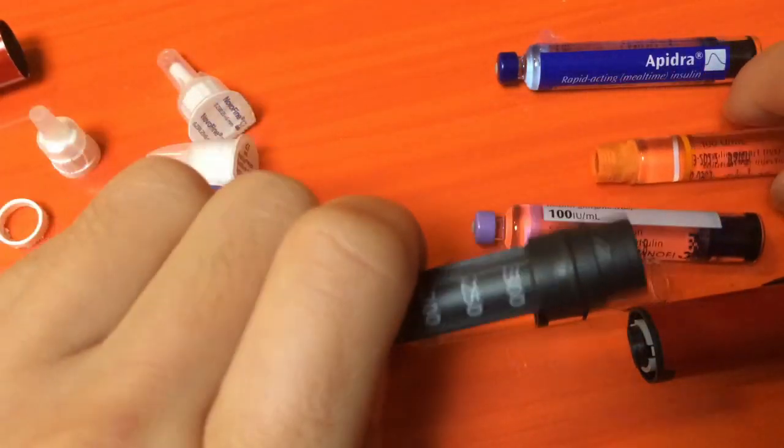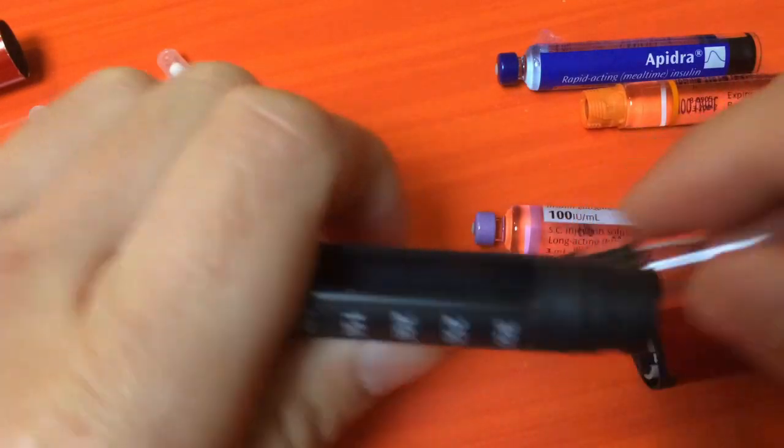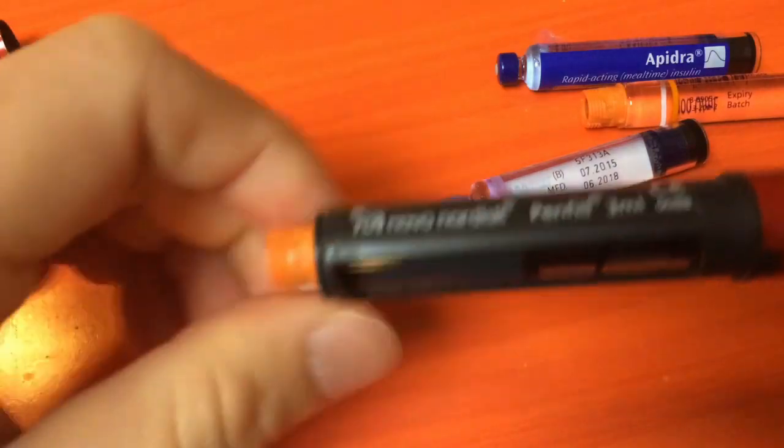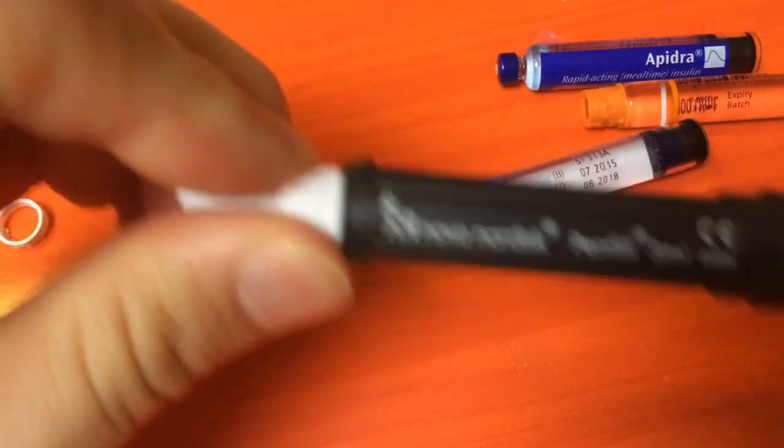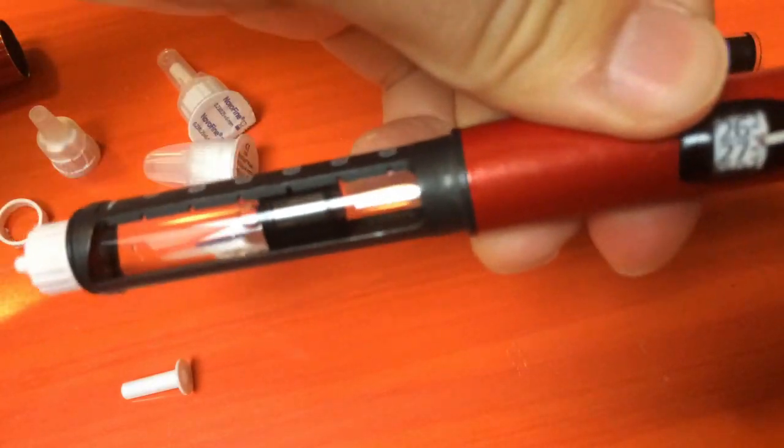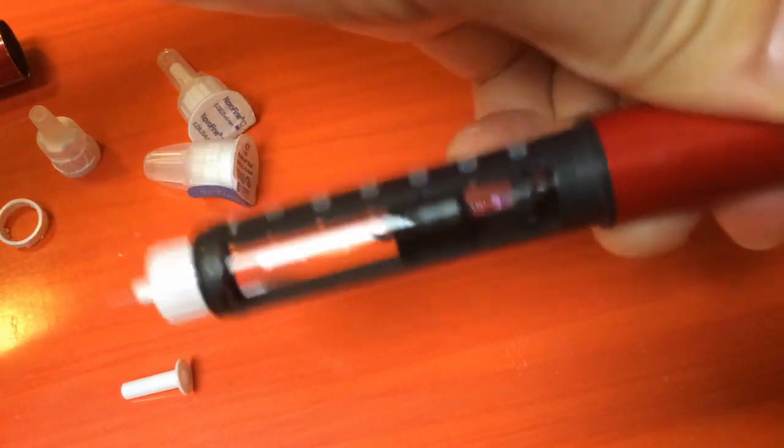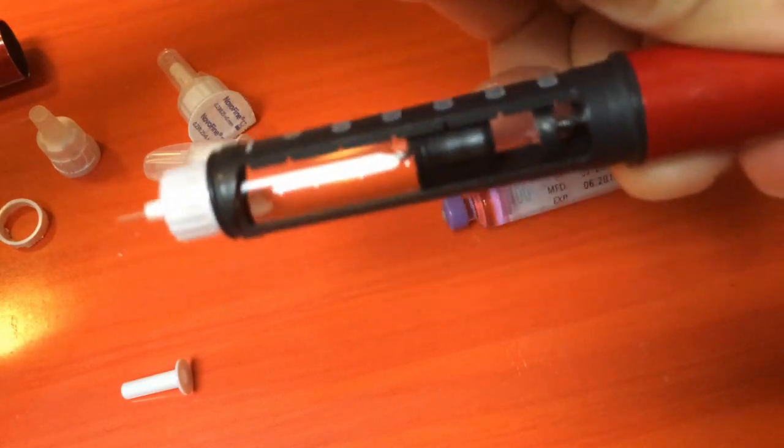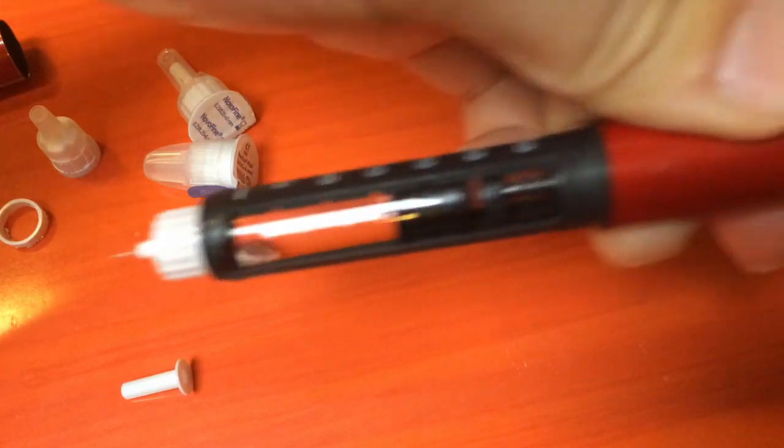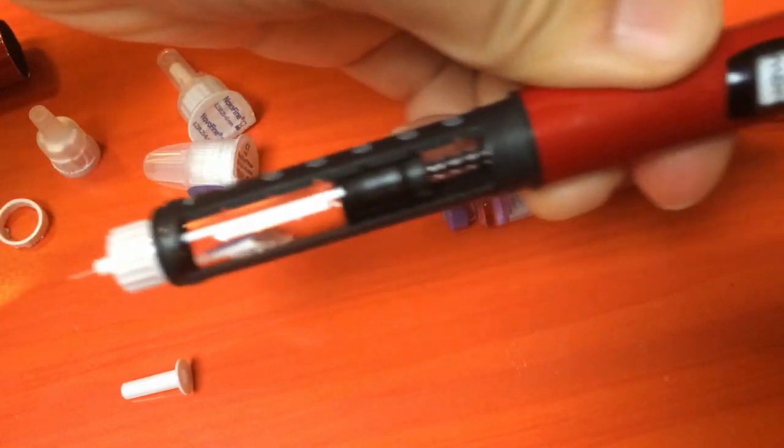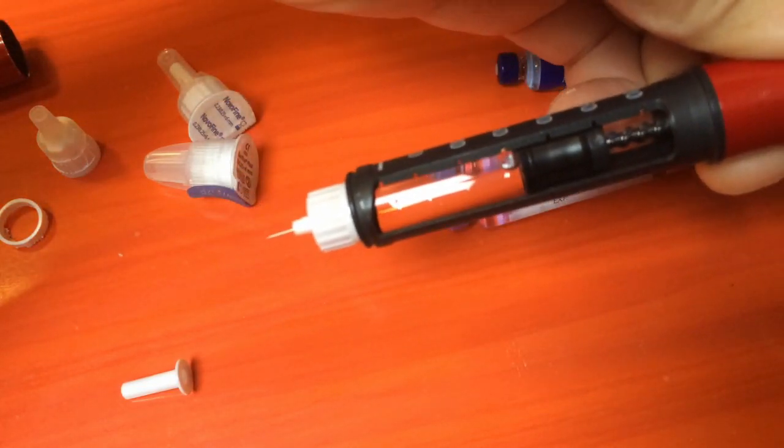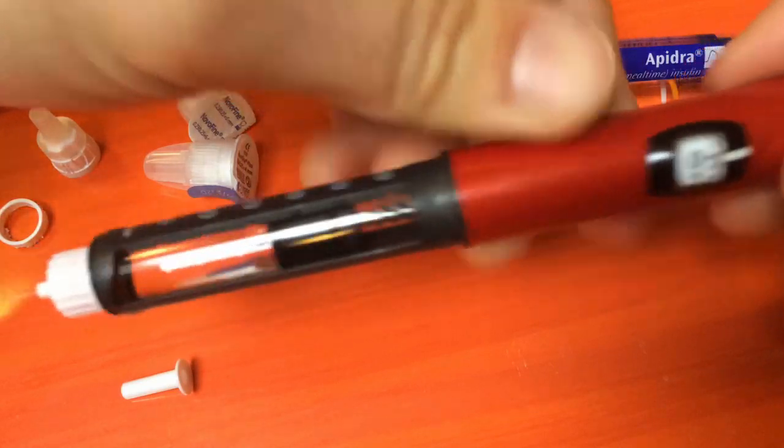Because of this, the mechanism inside the NovoPen doesn't allow the plunger to push down on the vial. This is an Apidra vial, the shorter one that doesn't work. If I dial in 30 units, there should be insulin spurting out, but it doesn't because of that shorter length.